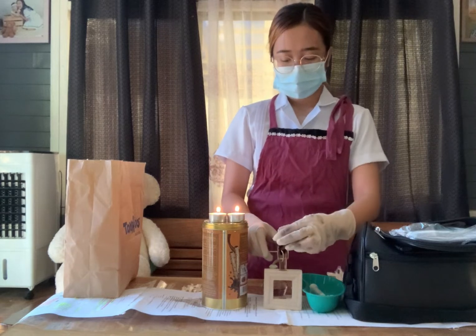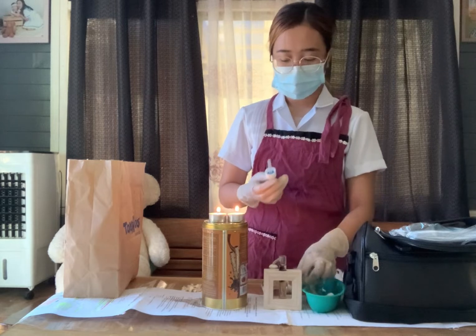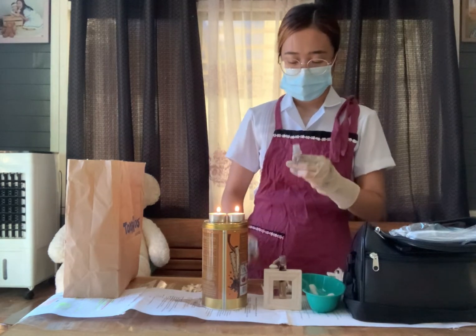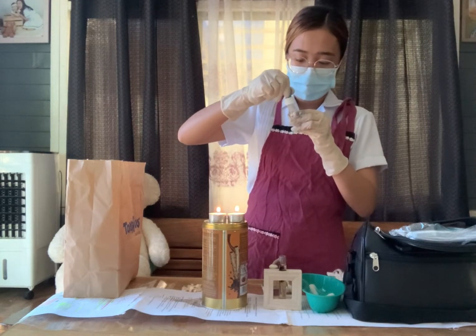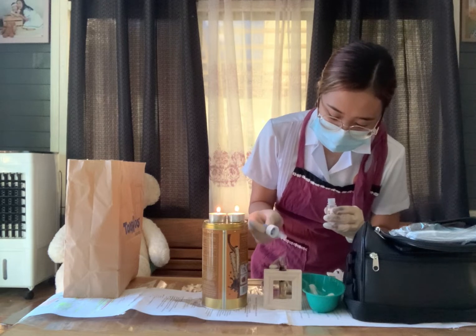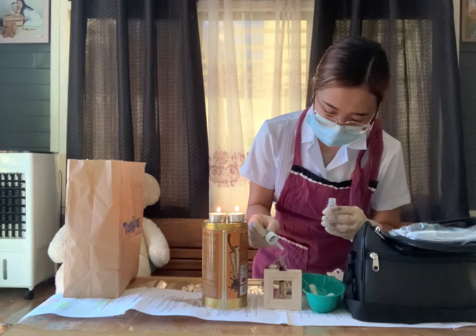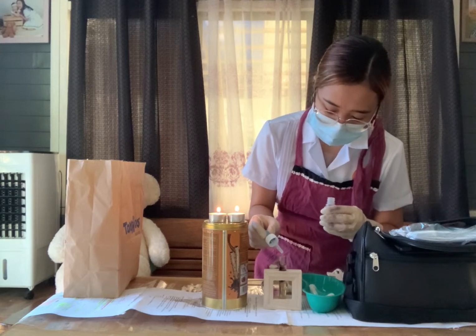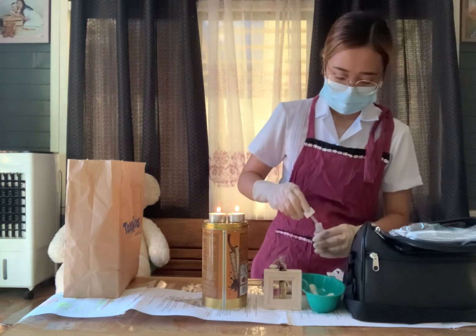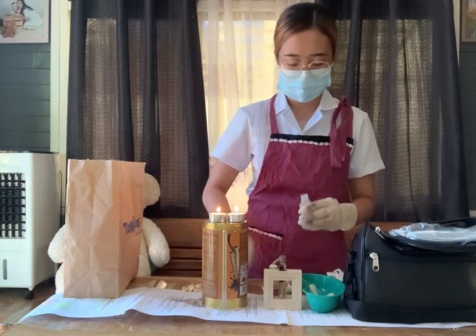After heating the upper portion of the test tube, we will now put five drops of acetic acid, making sure to drop it one at a time — one, two, three, four, five. Then place the used dropper onto the waste receptacle.